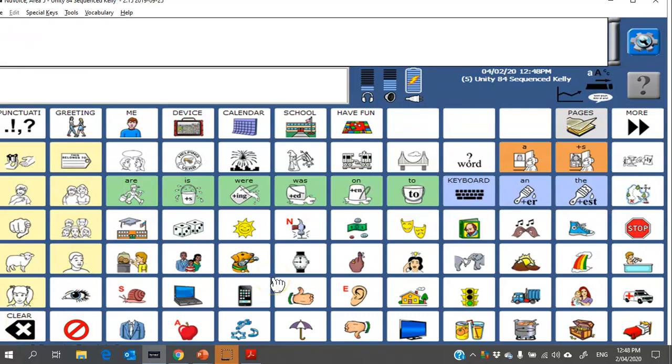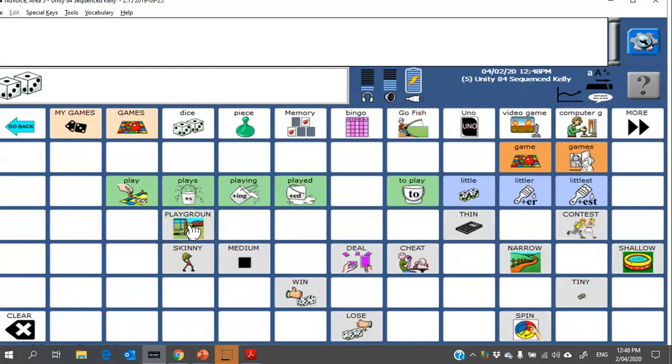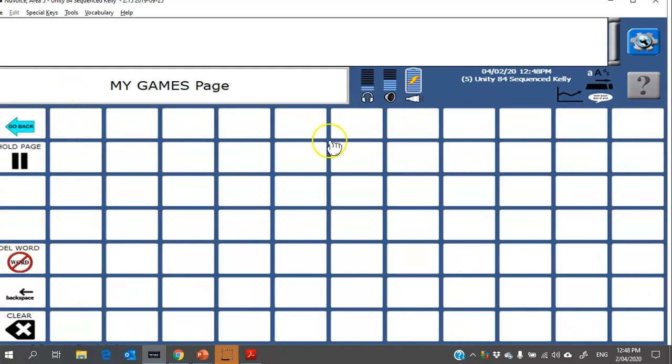Next, you might want to do some simple programming, so adding in maybe people's names, places, any personalized vocabulary like, for example, a person's favorite things. Always be sure to check in the Word Finder first in case the word is already within the vocabulary. So I like to play games, so I'm going to head in here and there's a section for my games, and you can see it's giving me a whole blank page ready to load in my favorite games.